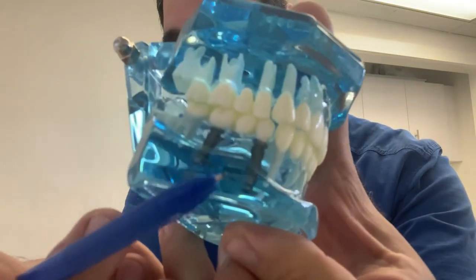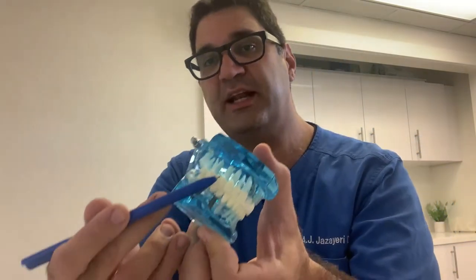This right here is an implant bridge, where you can see two implants and a three-unit bridge on top. So you can replace multiple teeth and you don't need as many implant screws as missing teeth. As you saw from that example, you have three teeth missing but only two implants can support a three-unit bridge. So you can replace one tooth, two teeth, or three teeth. And you can replace all of your teeth — yes, even if you're completely toothless, you can replace that with implants.